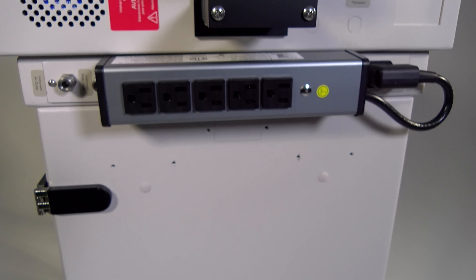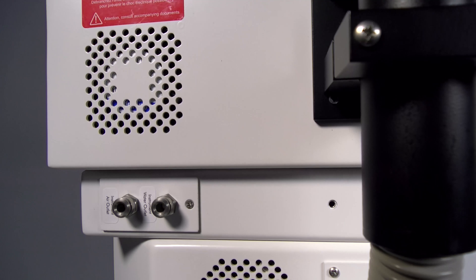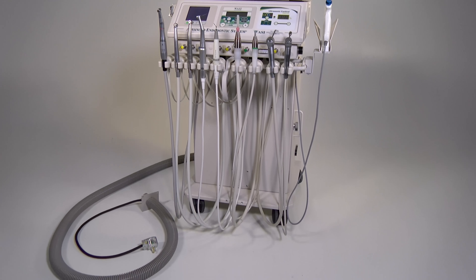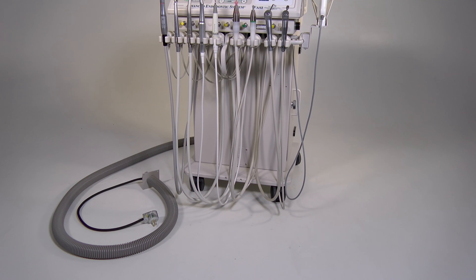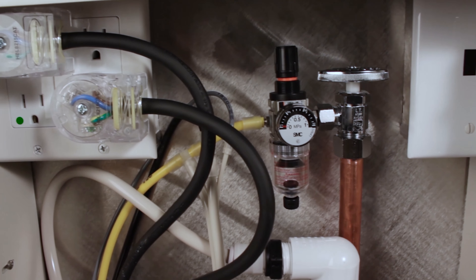The system features advanced circuit breaker technology and is fan-cooled to provide air movement over internal electronic instruments. All components of the cart run through one common conduit to an ASI in-wall junction box or floor box.